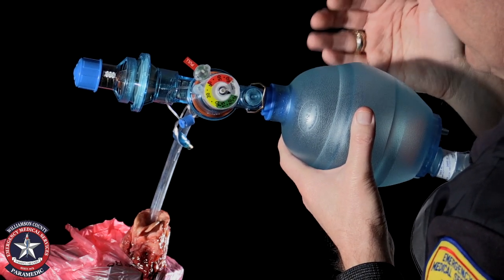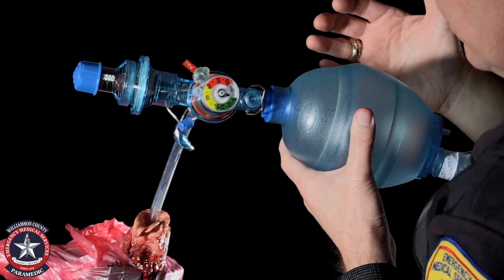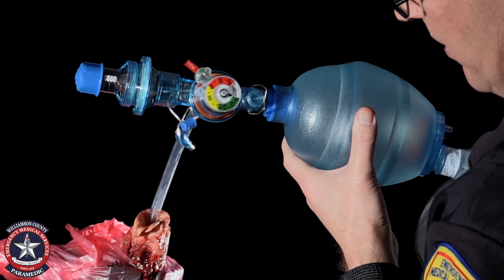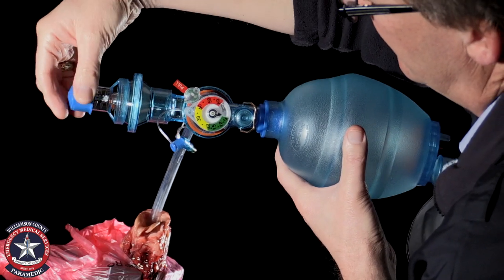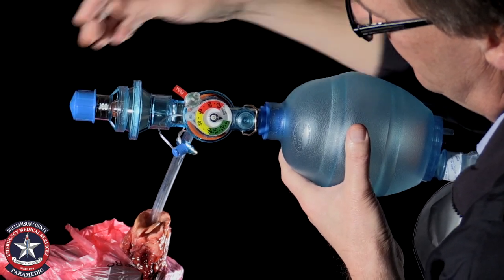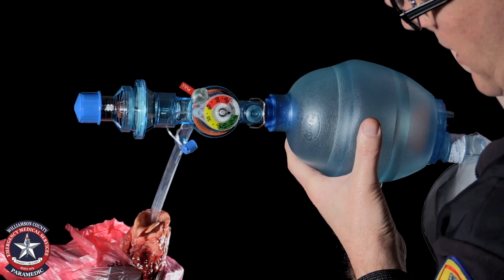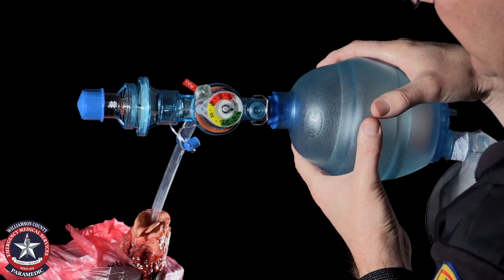This is again a little artificial because in life the lung is attached to the visceral and parietal pleura, so they are fixed to the intercostal space — there is some external support we don't have in this model. So PEEP is much more effective where it's not completely collapsing. I'm going to dial in five of PEEP and bag again — watch the stair-step expansion and the lack of complete deflation.